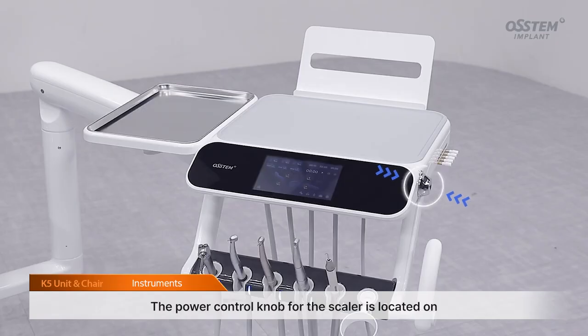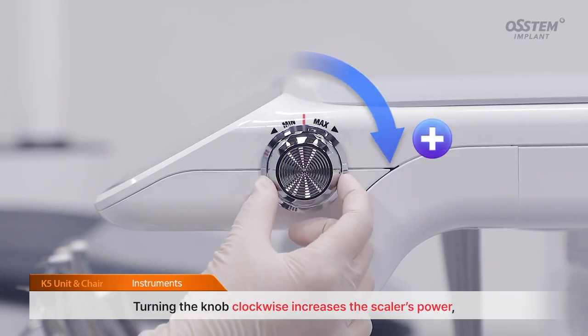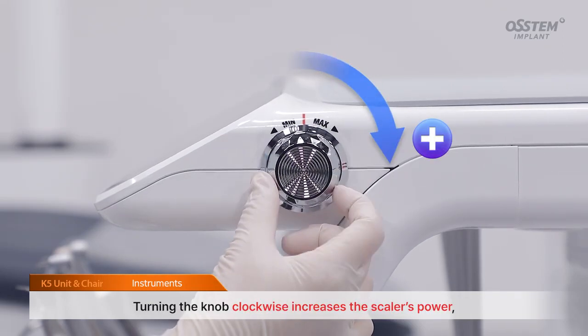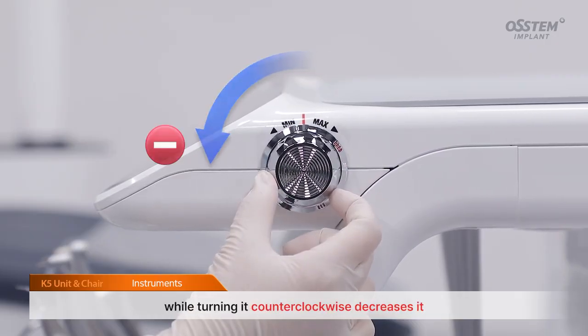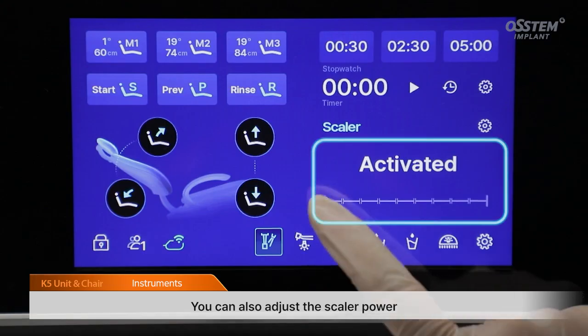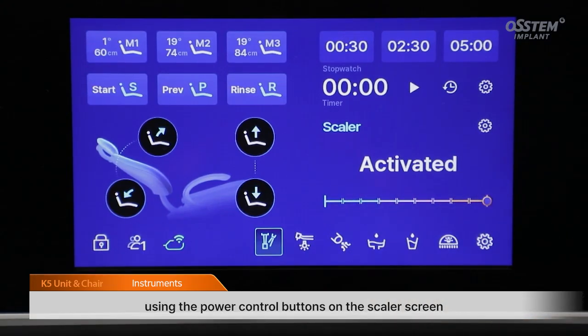The power control knob for the scaler is located on the right side of the doctor table. Turning the knob clockwise increases the scaler's power, while turning it counterclockwise decreases it. You can also adjust the scaler power using the power control buttons on the scaler screen.